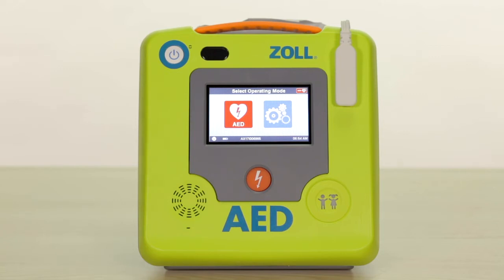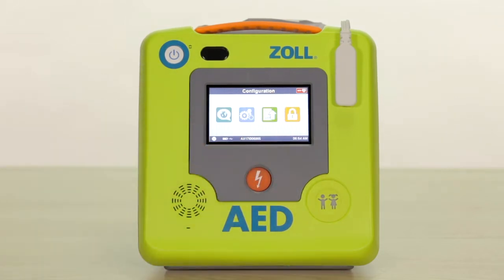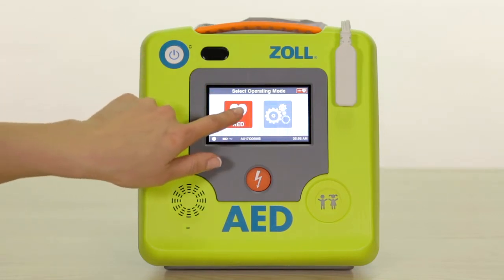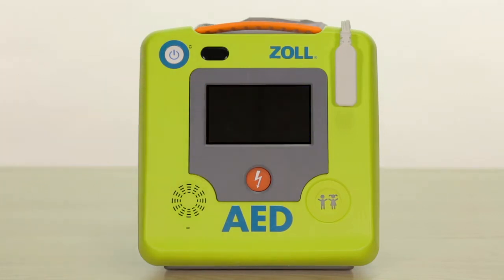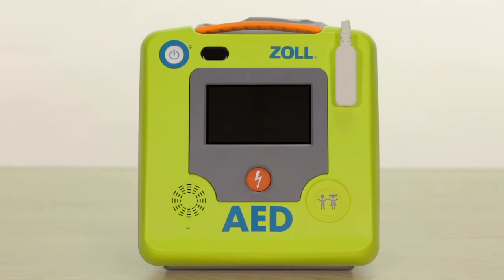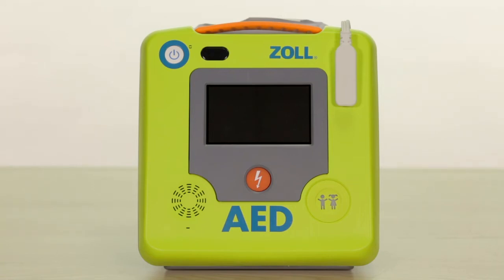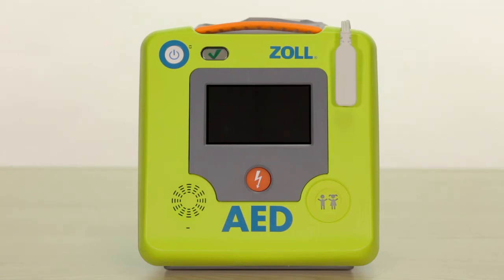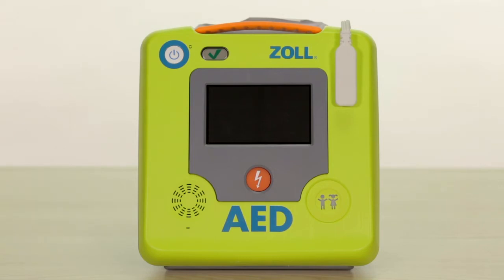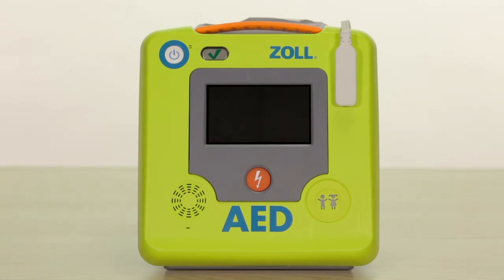When selected, the blue gear icon will bring you to the basic configuration screen, and the red heart icon will immediately place the AED in rescue mode and begin rescue prompts. Note that as a safety feature, if you do not select the blue gear configuration icon within 30 seconds, the AED3 will automatically go into rescue mode.